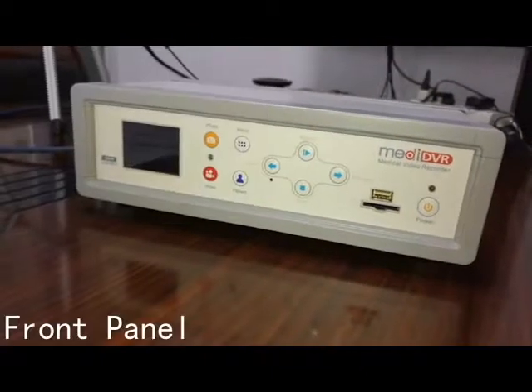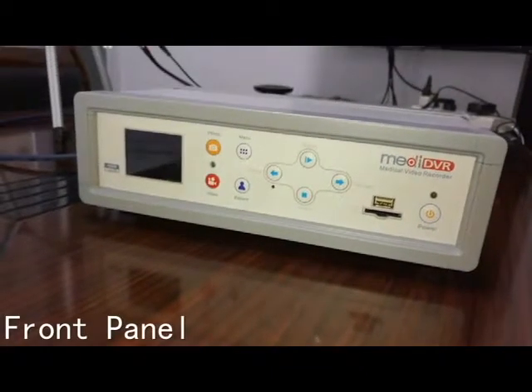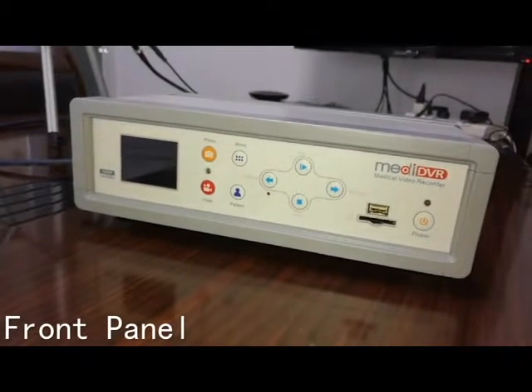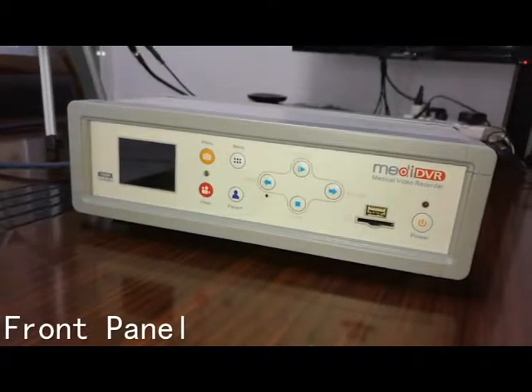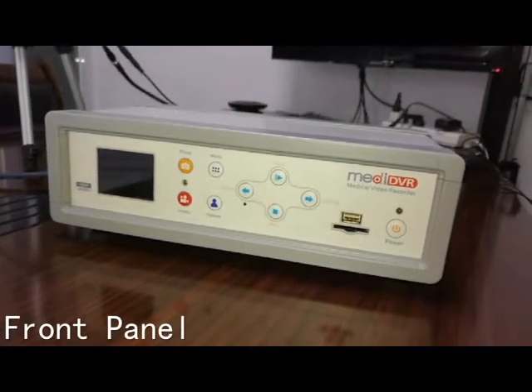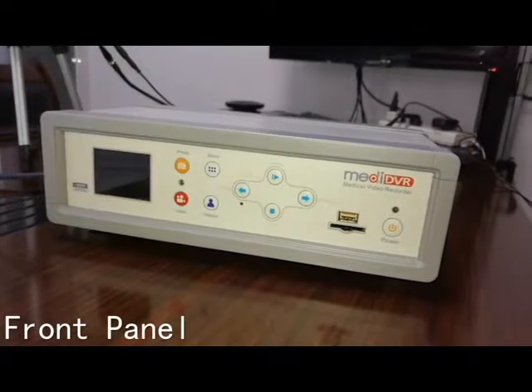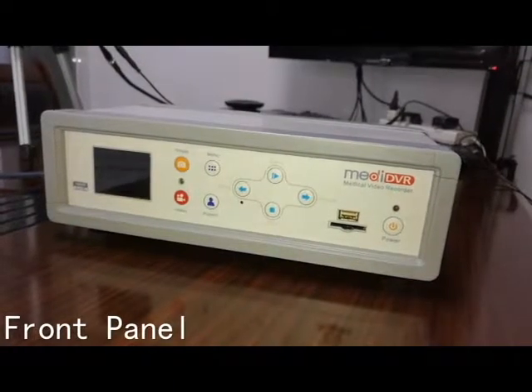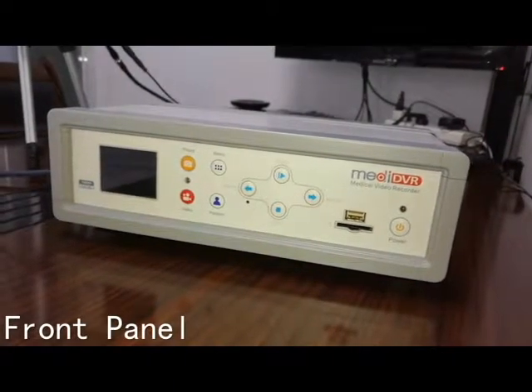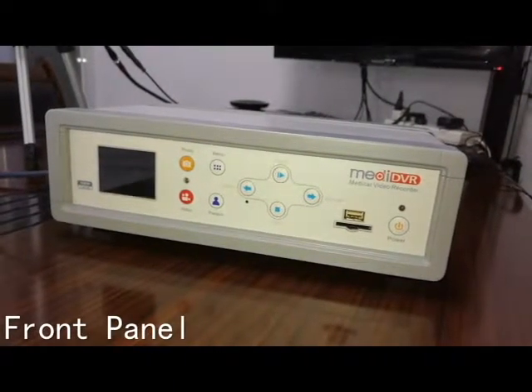Front panel. At the first sight of our product, MediDVR, you will directly see the front panel. The front panel contains four function buttons and four selection buttons.